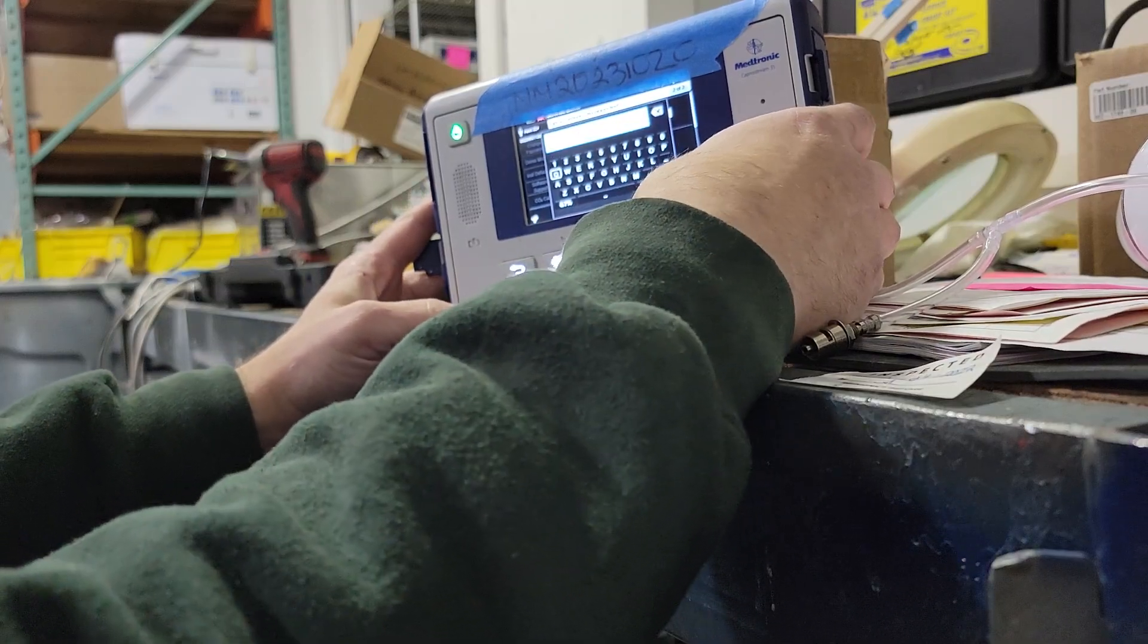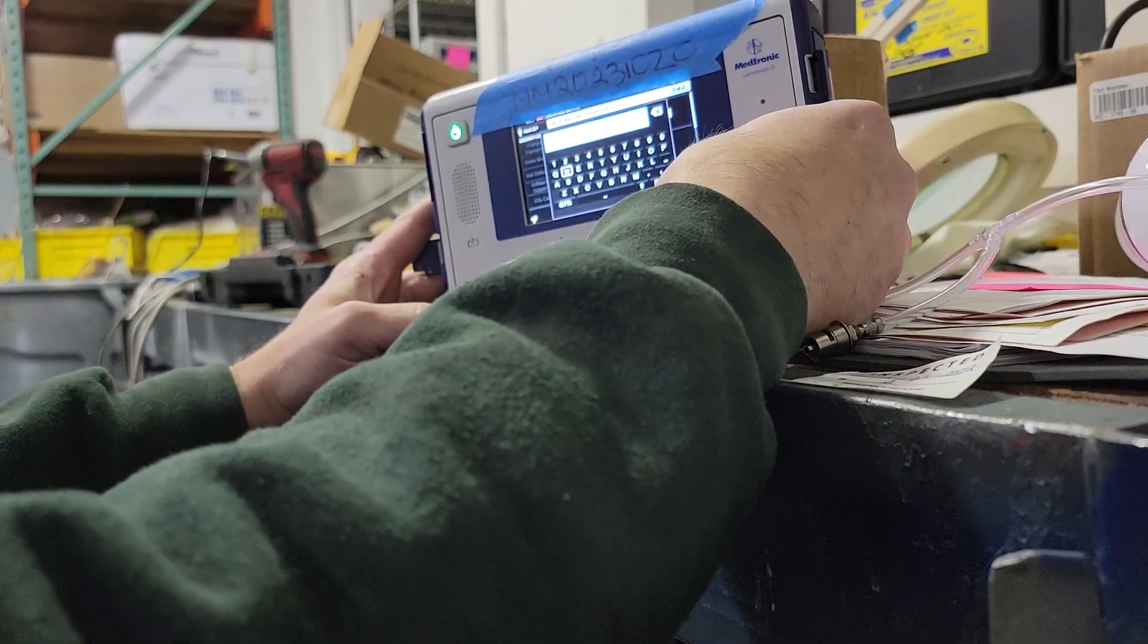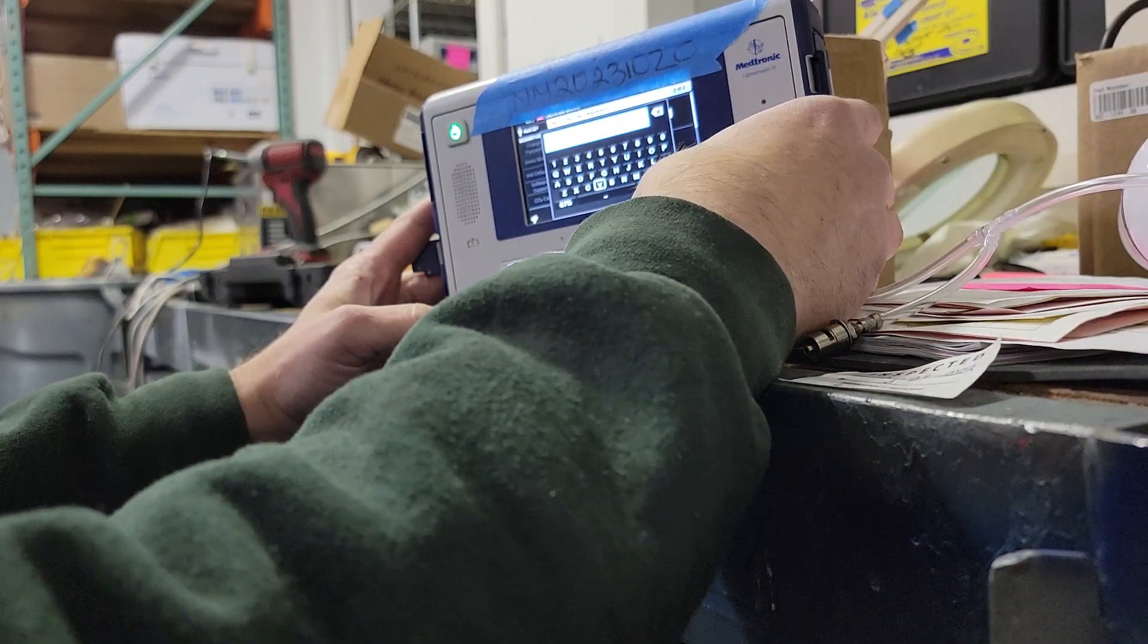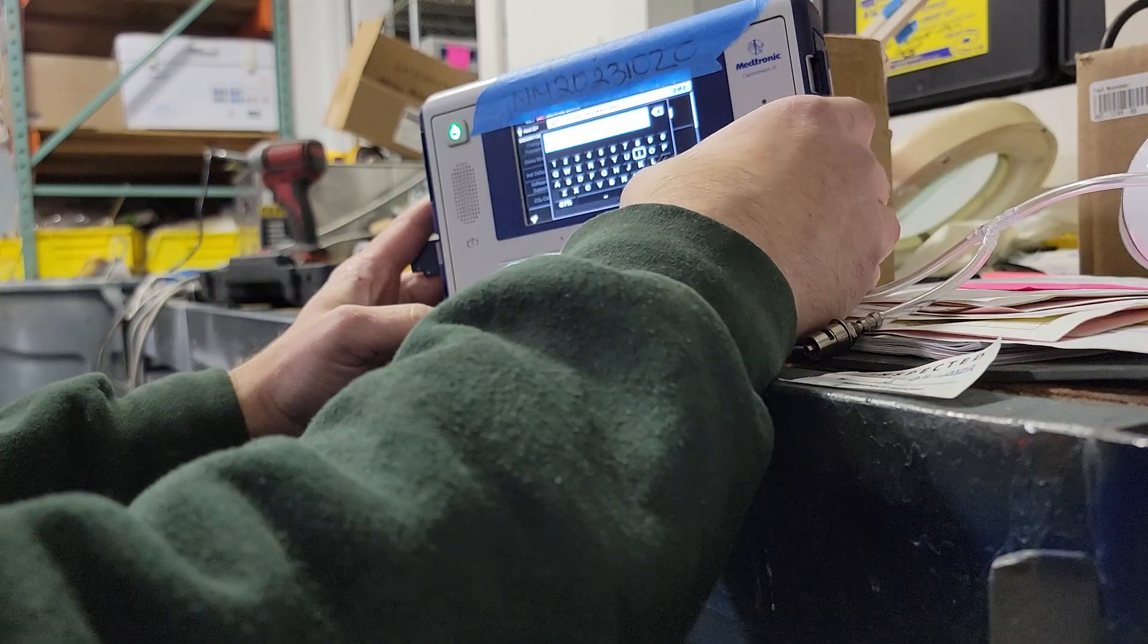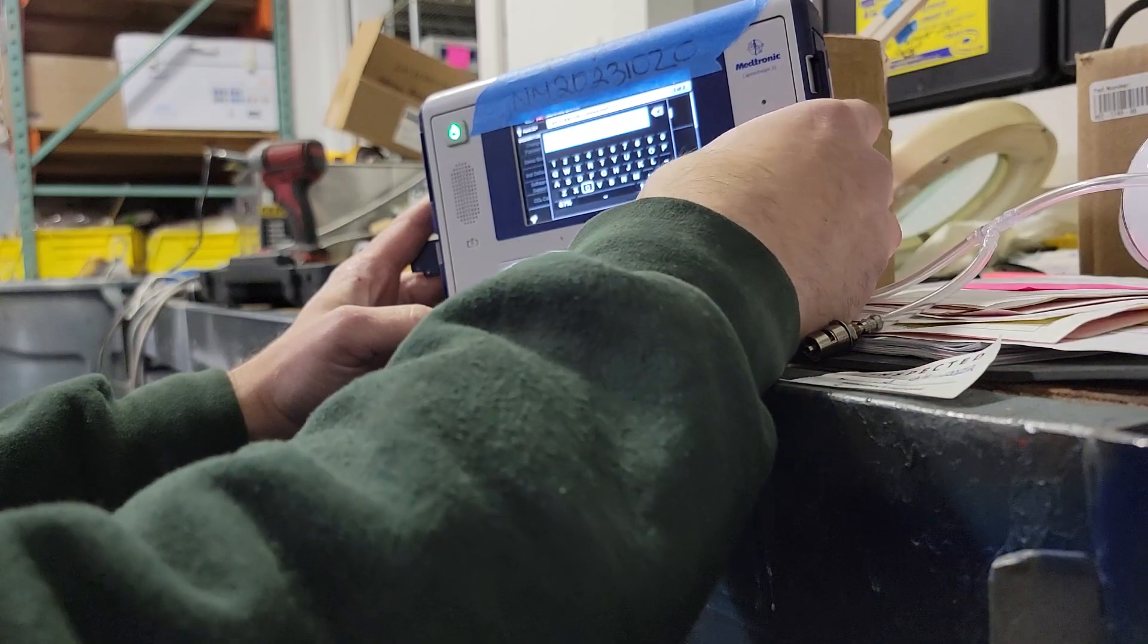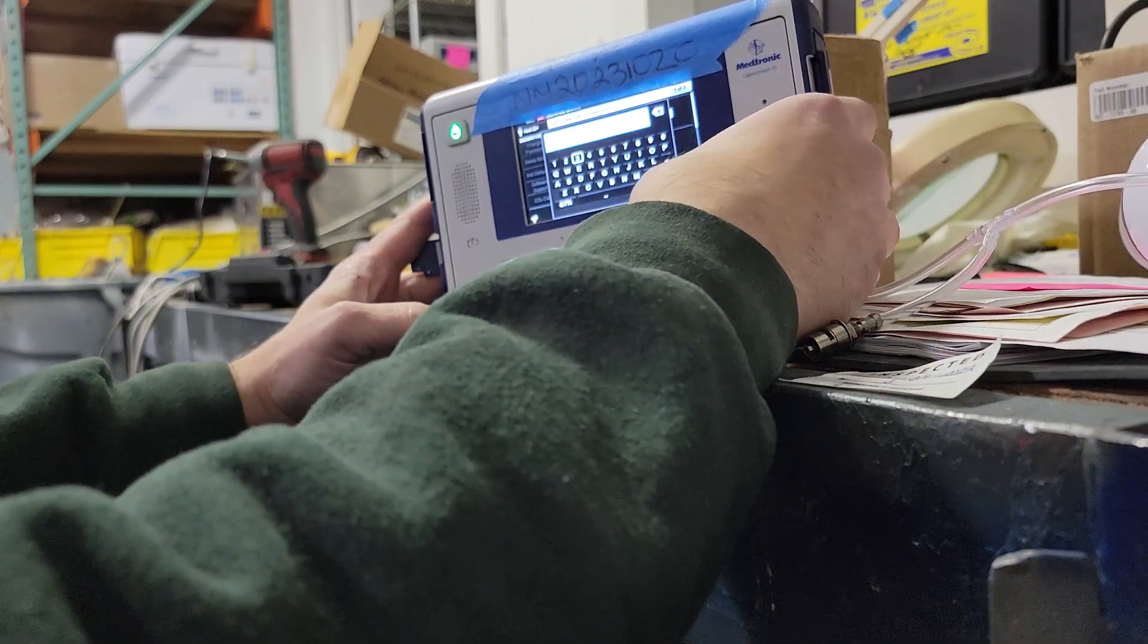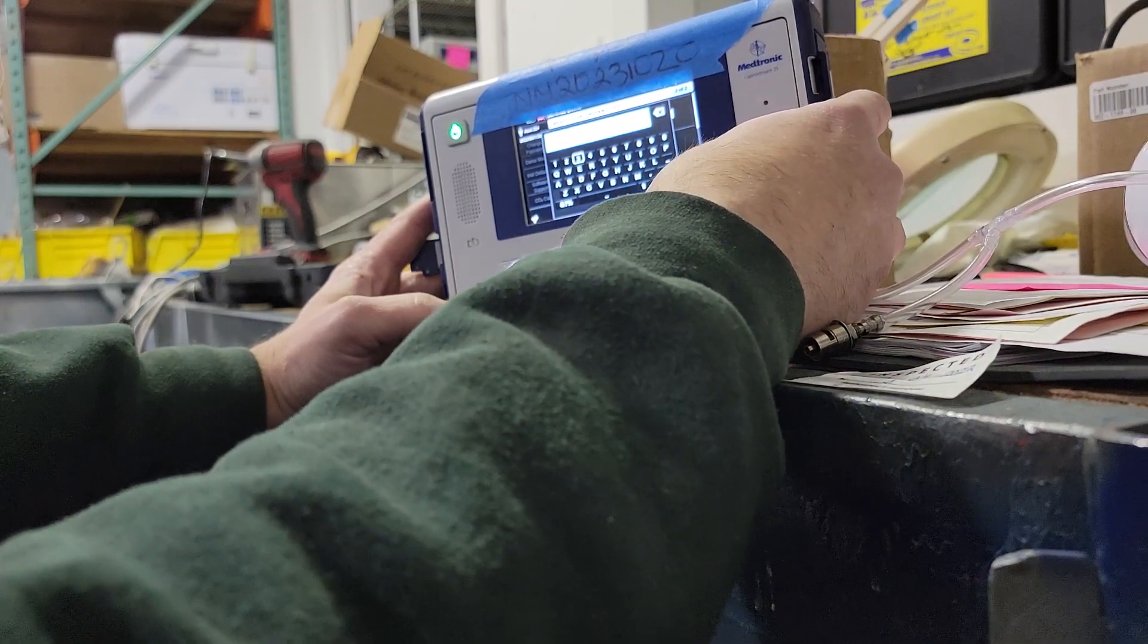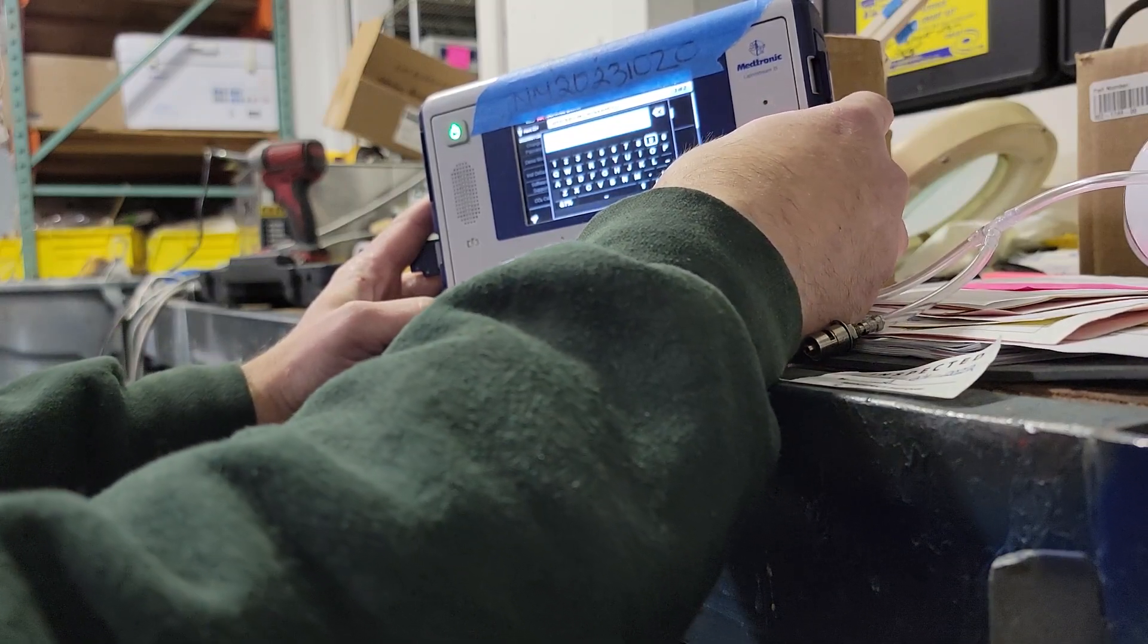So I'll go in, pump down the keys, and you're looking for the done button.